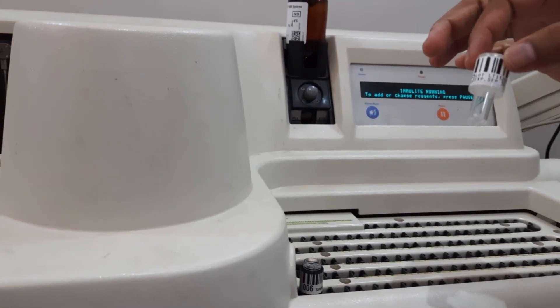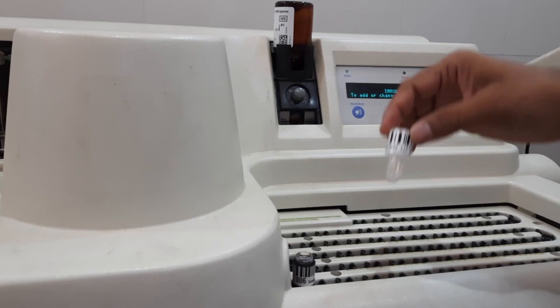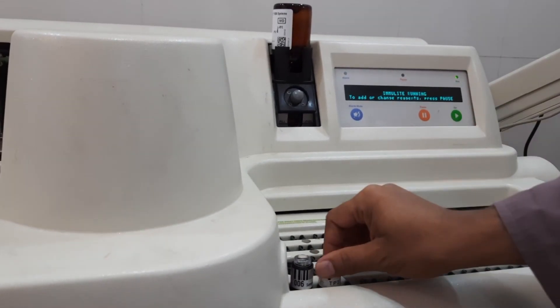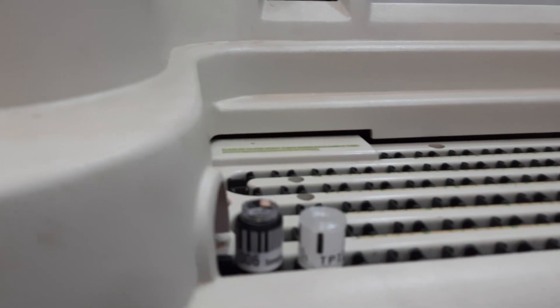The reaction tube and sample cup need to be placed here. The machine will quickly take this inside for the subsequent steps.